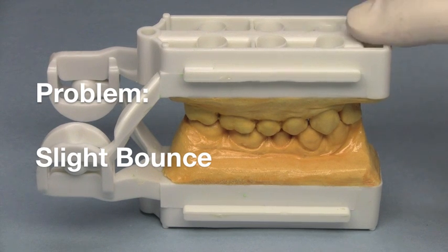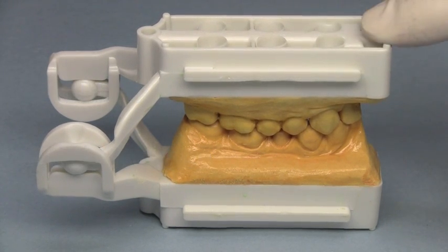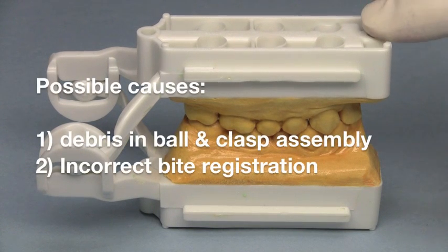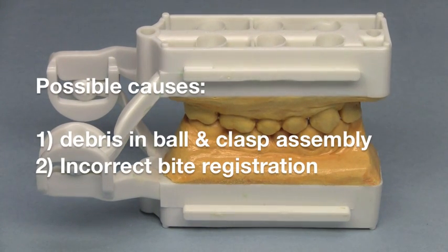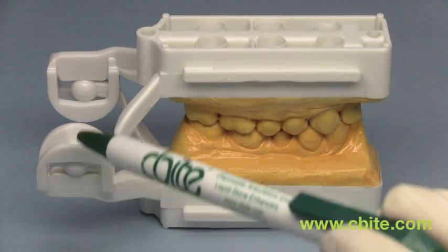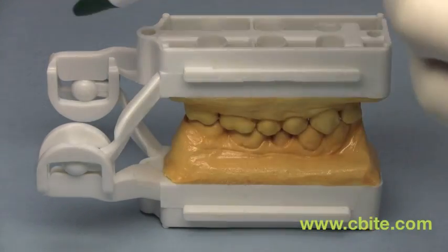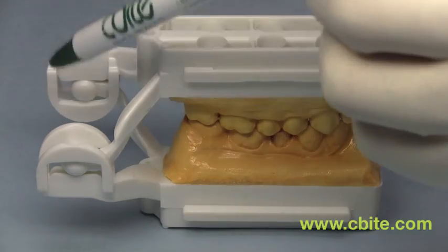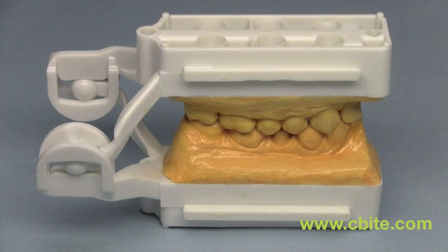Here's an instance where a slight bounce exists. It's subtle, but it's there. This could be a problem caused by stone dust or minute debris caught in the ball and clasp assembly, or it could be an incorrect bite registered by the impression taken.